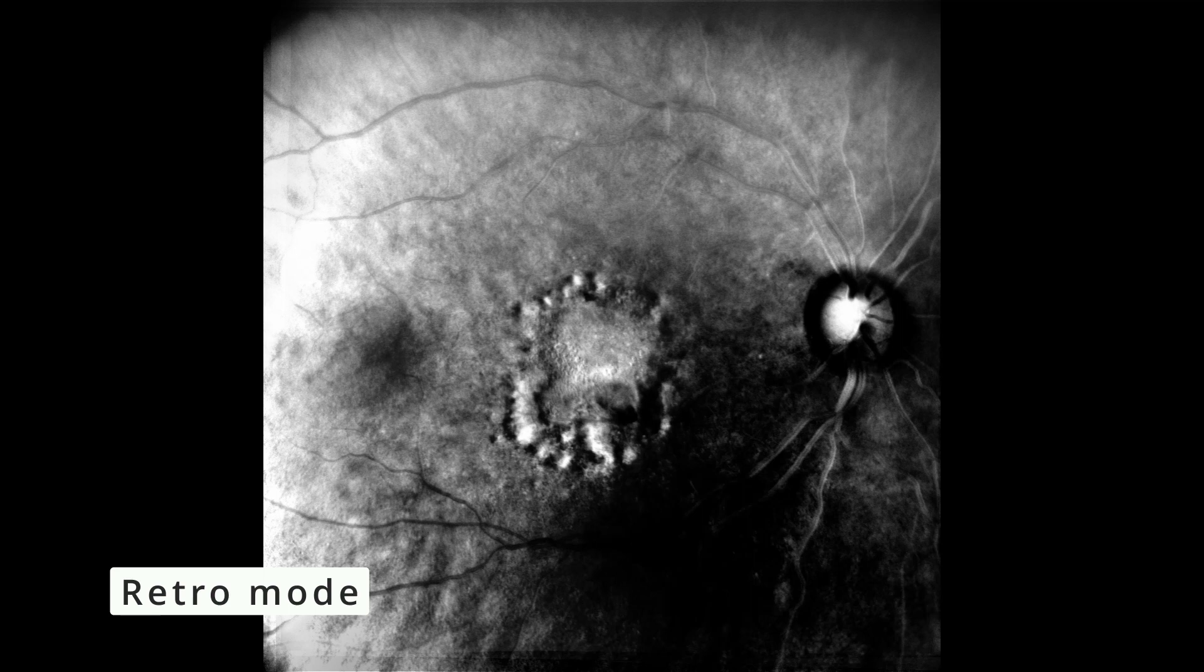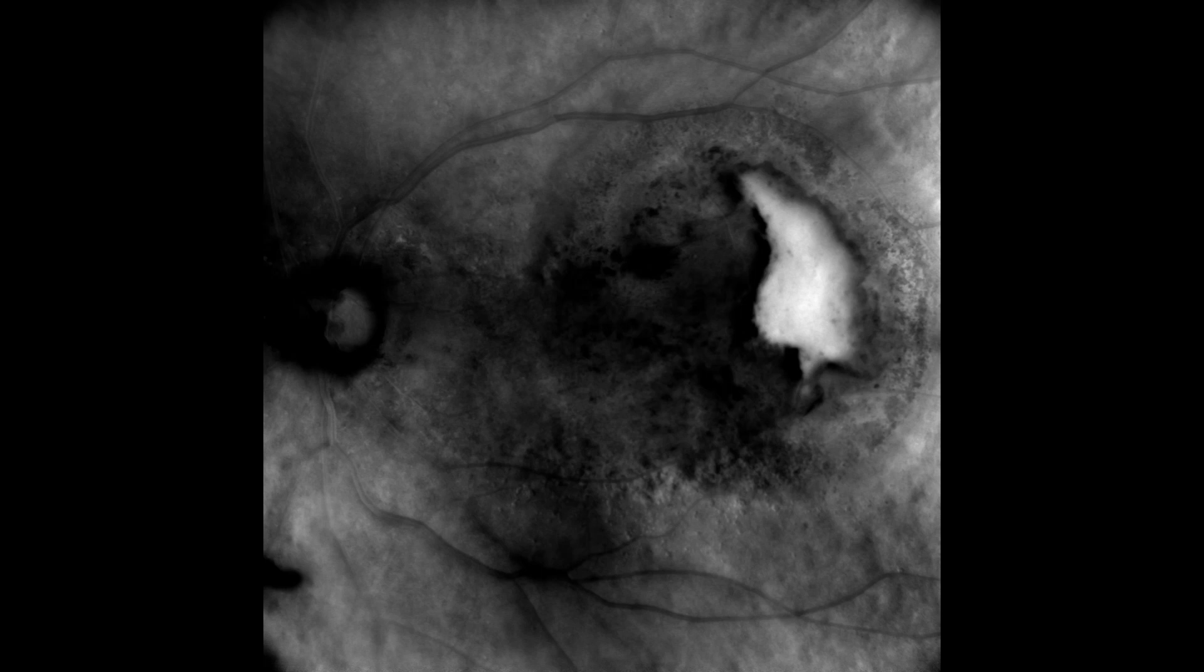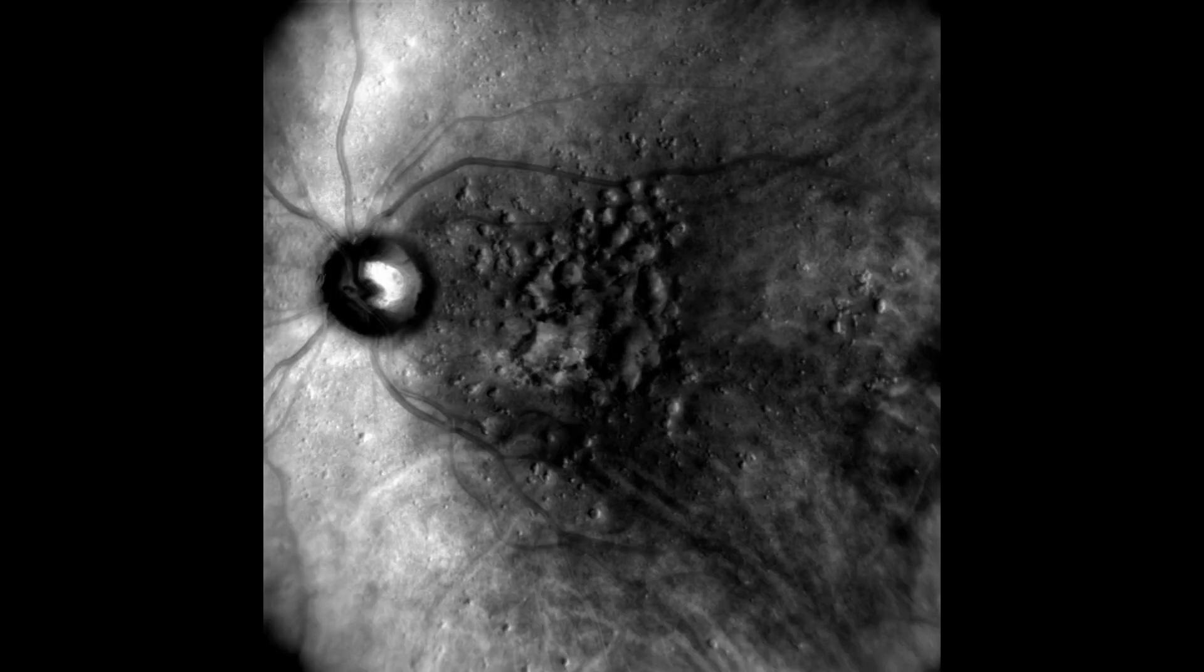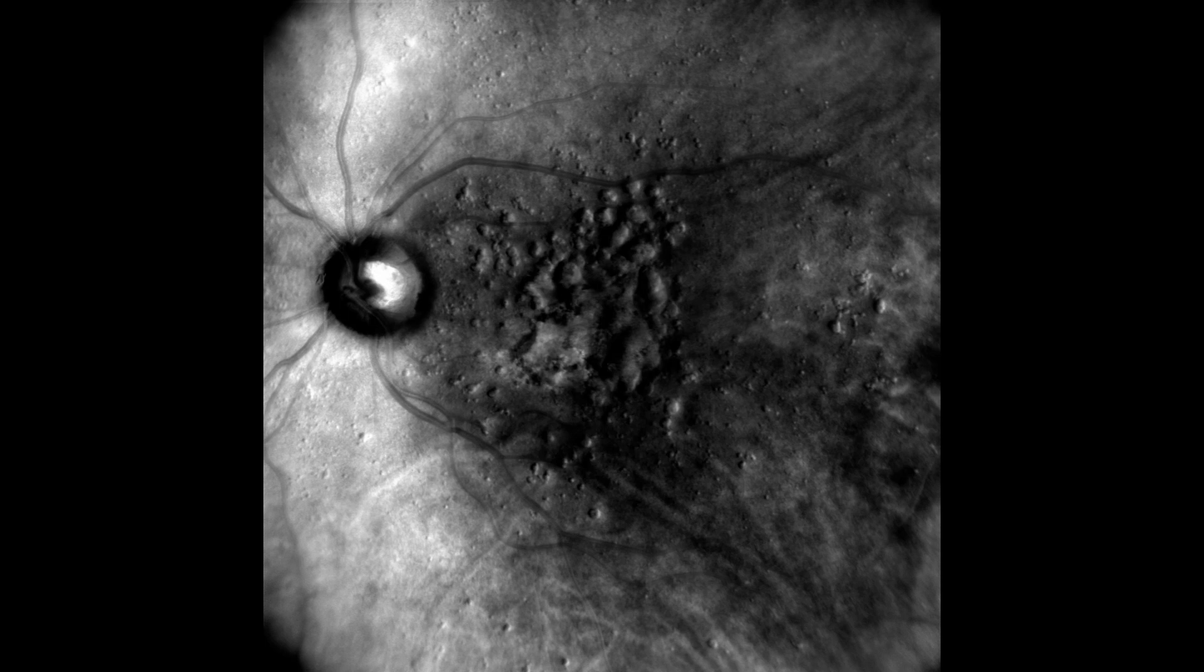There's something that's unique for this machine as I already briefly touched on which is the retro illumination. It looks great, it's very nice for showing to patients. We still don't know what its real clinical utility is, whether it's as useful as the 3D animation of the optic nerve which is great for the patient, or whether it's as nice as let's say autofluorescence. The truth however is that it really allows you to see drusen in even young patients. You have patients who are 20-something and they have some small tiny little drusen and you can see them using retro mode only.